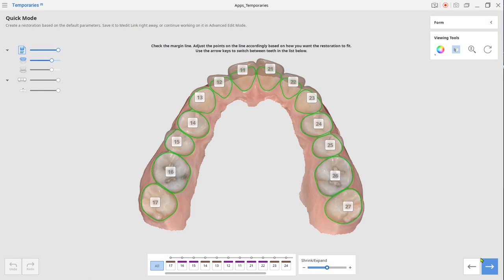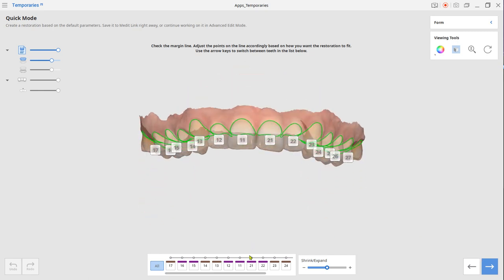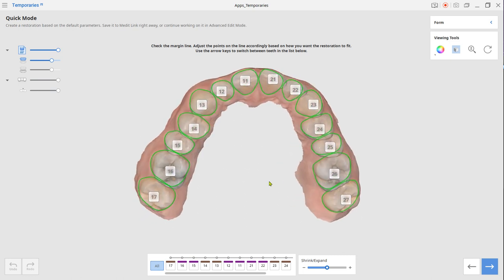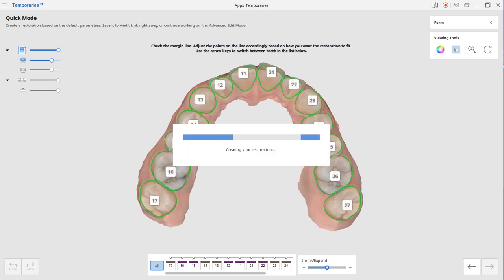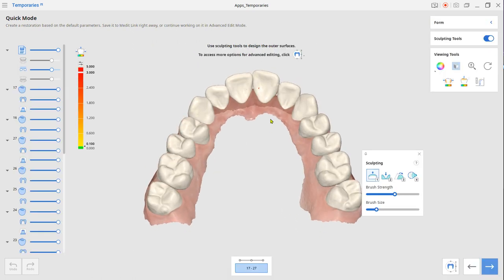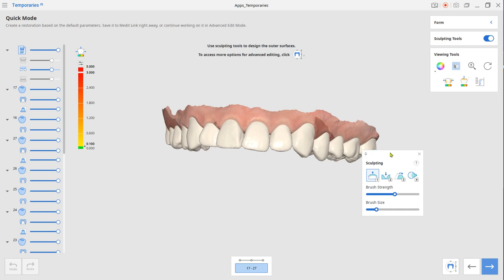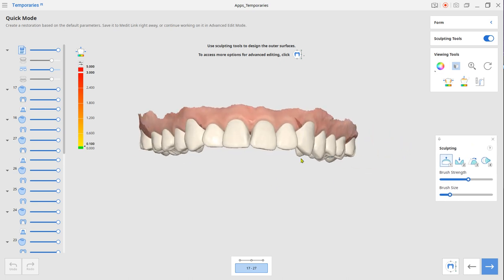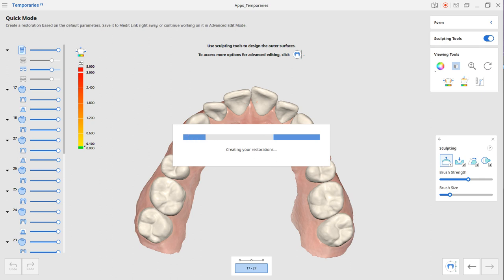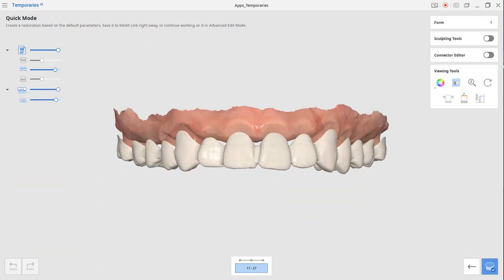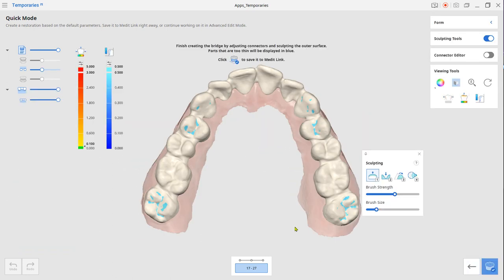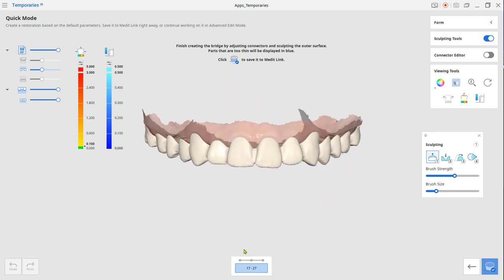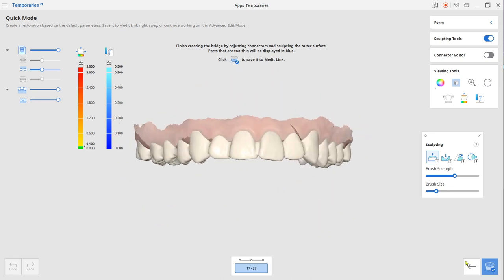Adjust the margin if needed. Perform the exterior shape adjustment if needed. Now review the temporary design and click complete to save it.